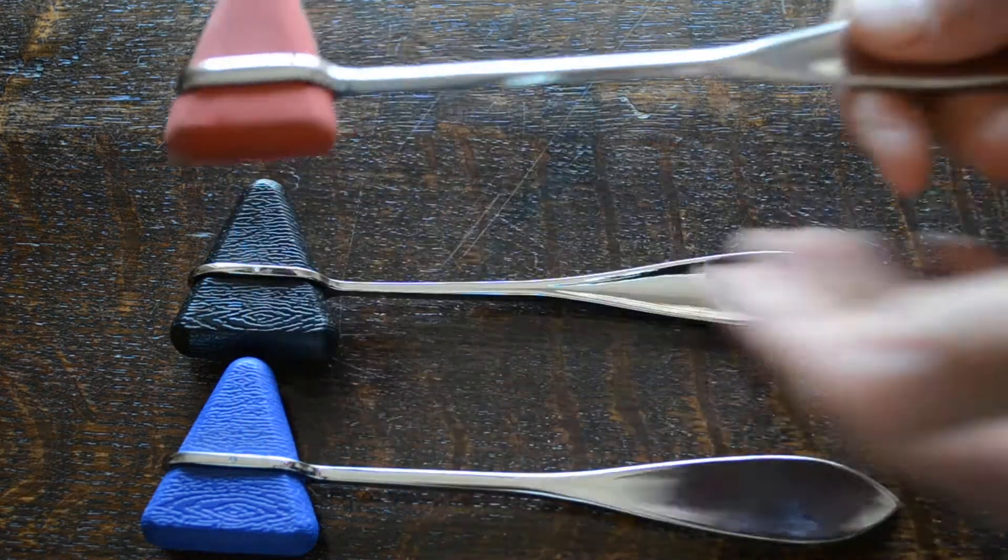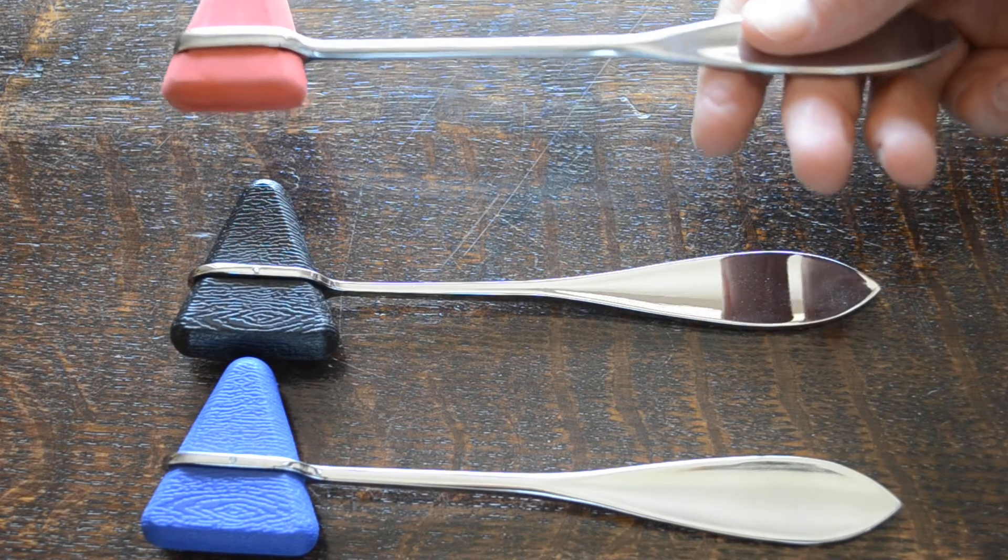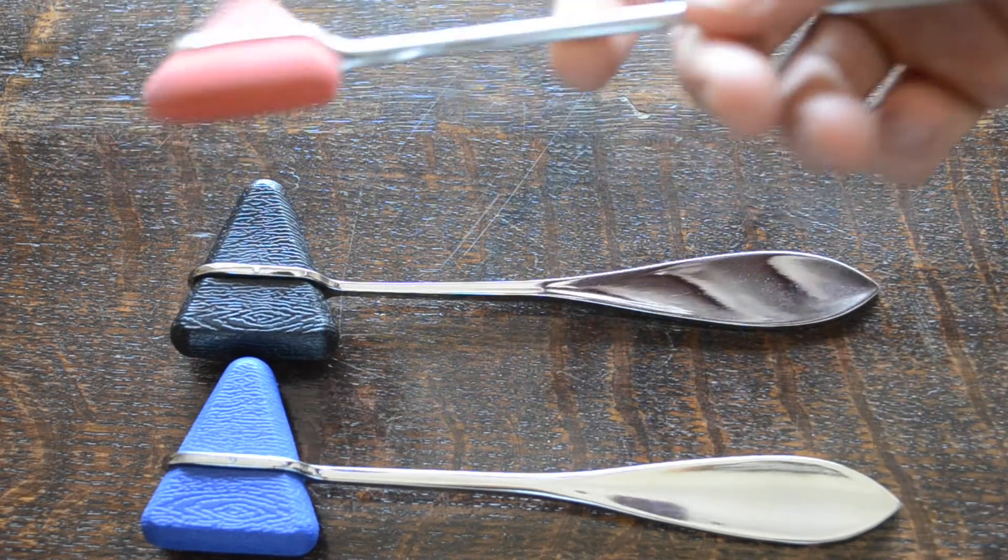It's a nice length handle, 20 or 18 centimeters, very little difference between them in weight and balance.